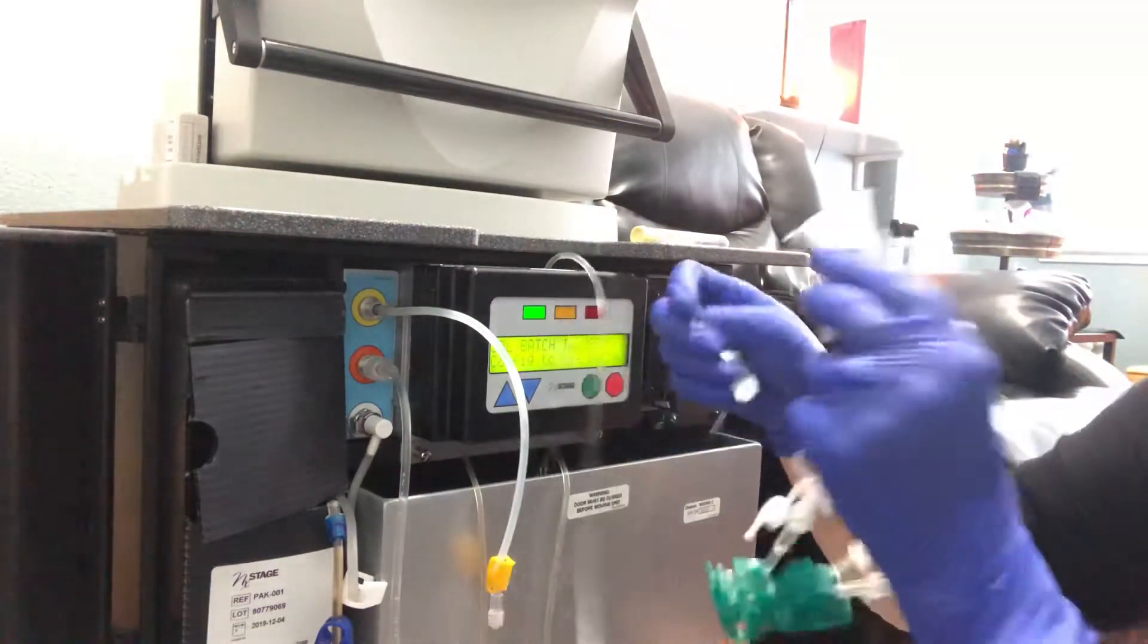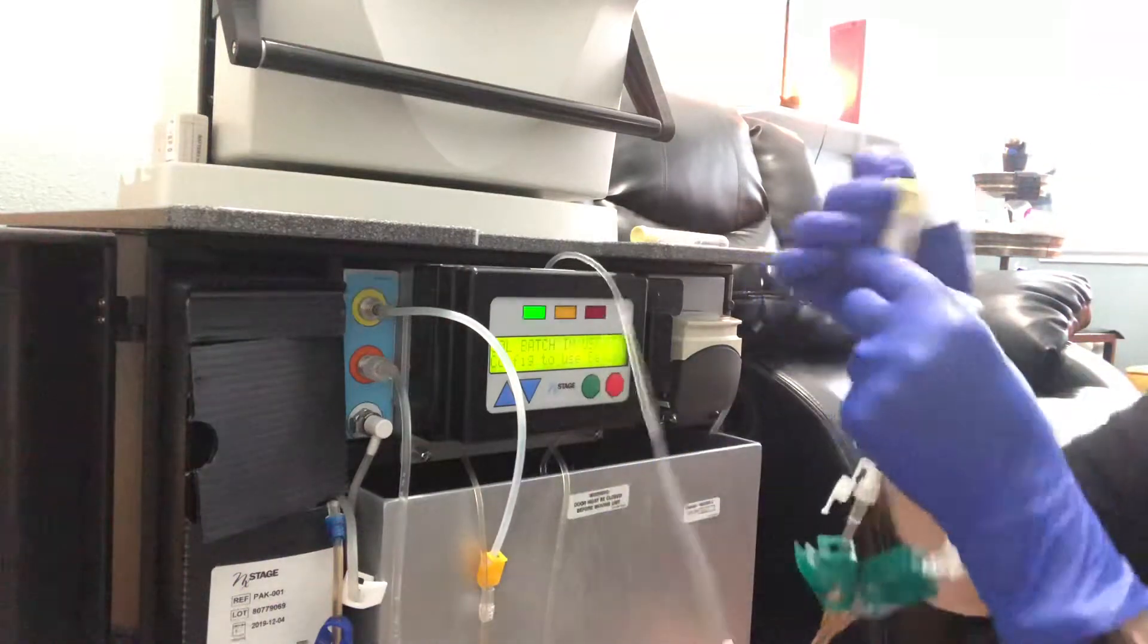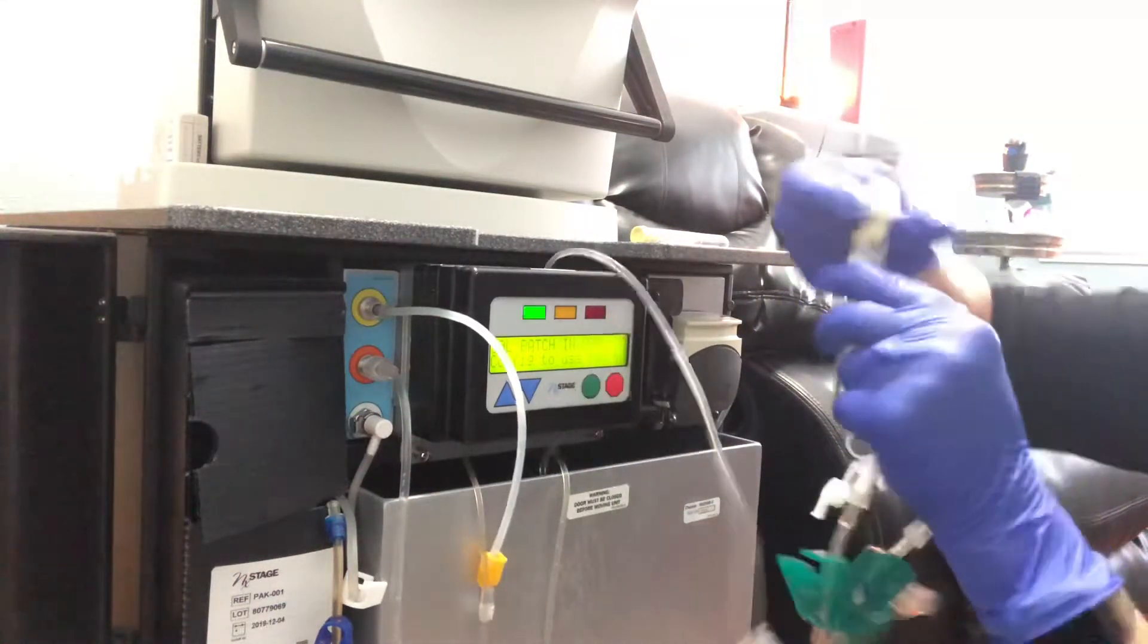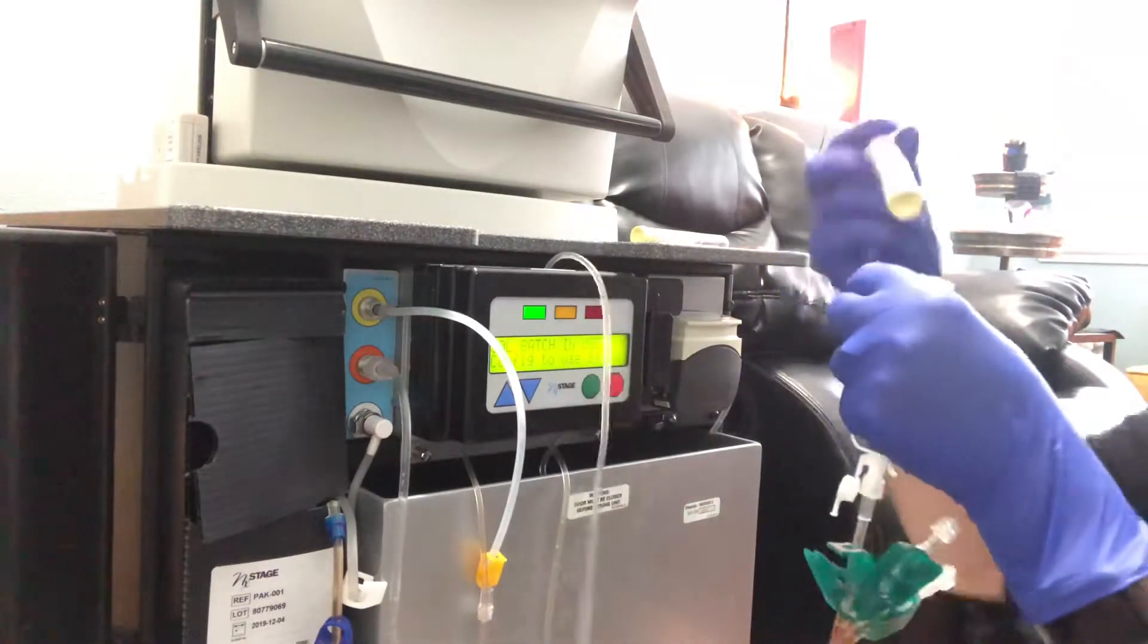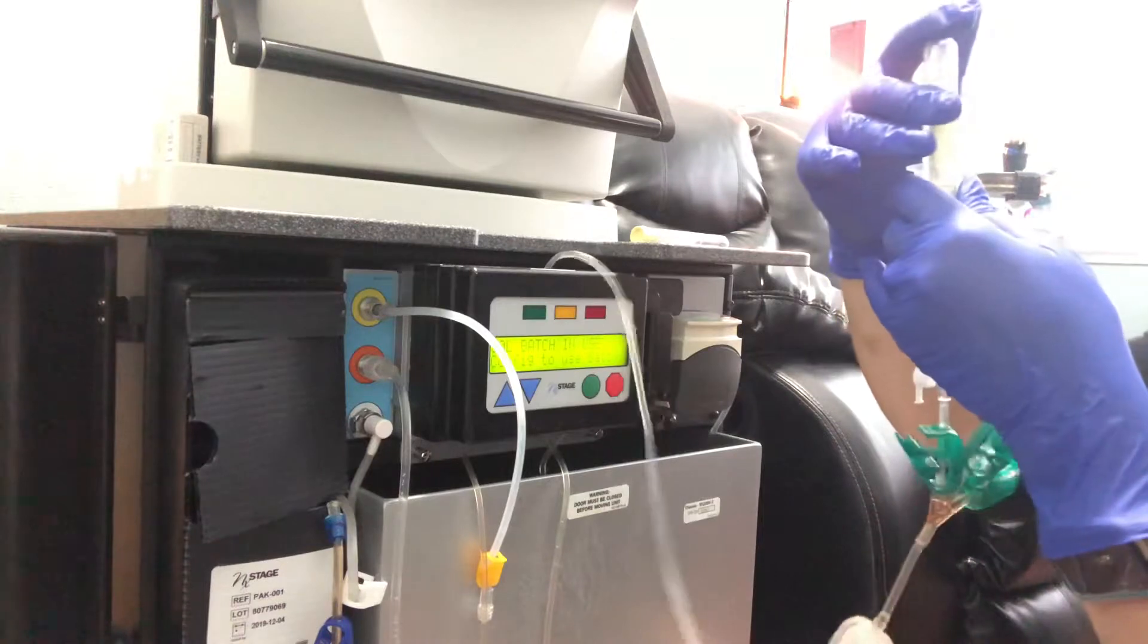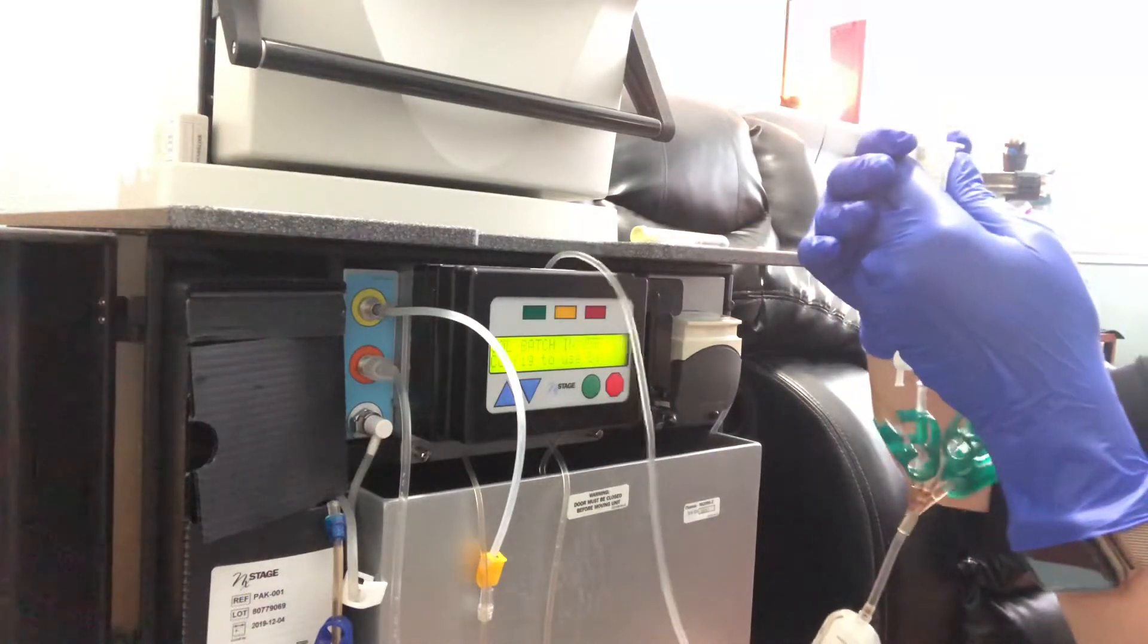Now we're going to clean the second yellow test tube here. And we're going to pop it in here. And this is the test tube that I will be sending to the lab.